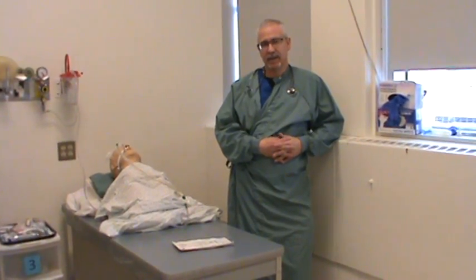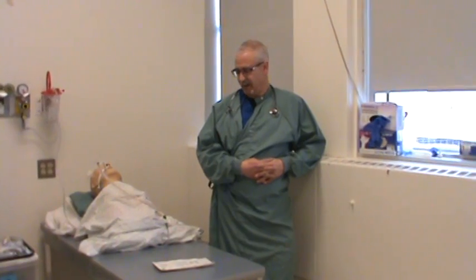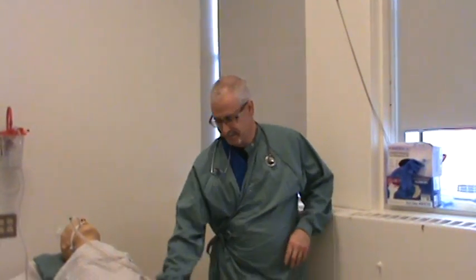Welcome back. This is another video that we're producing, another high-budget video through the Nate Resources. So welcome to the Friday morning edition of how to put on sterile gloves. Notice I've got a pack of sterile gloves. I'm not even putting these sterile gloves on yet. The important thing before you put a pack of sterile gloves on is to make sure you look good. I haven't done that — my hair's a little tousled up, but that's okay.